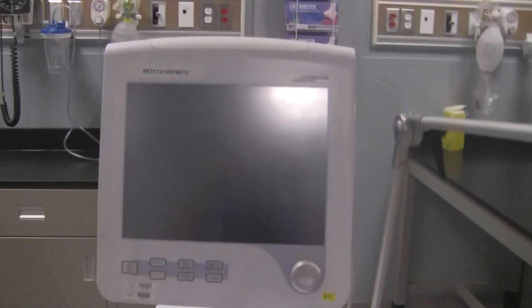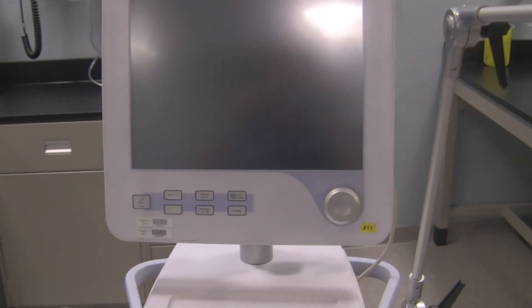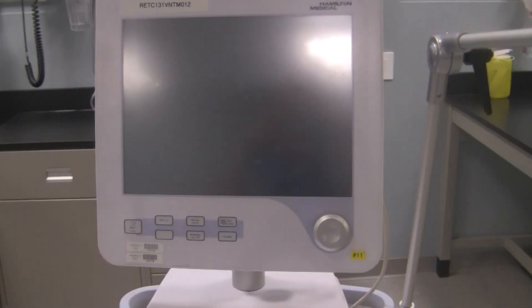Let's take a look at the G5. I guess we might as well start with the screen. There's a screen right over there. There isn't much to it, just looks like another ventilator or a typical ventilator screen. This is a touchscreen, so when the ventilator is turned on you will touch it to activate different controls and features and functions.